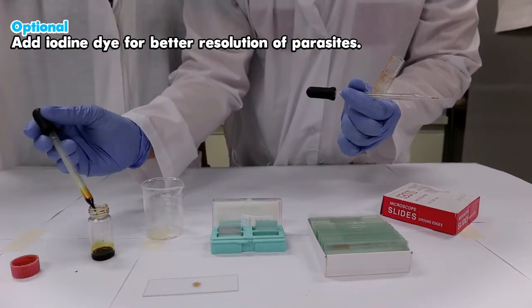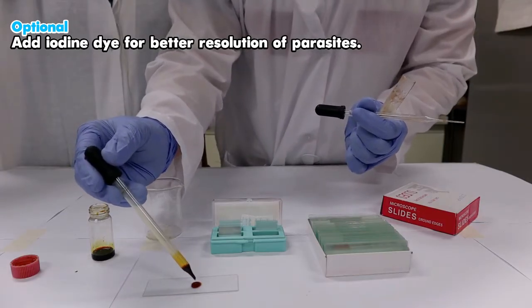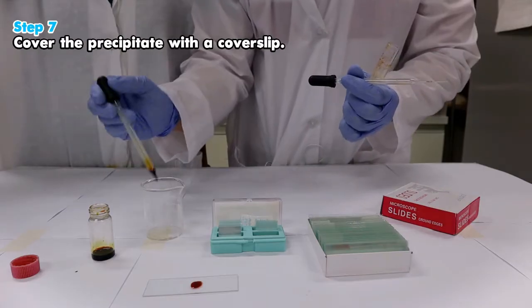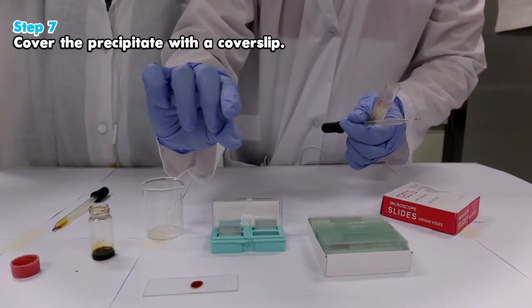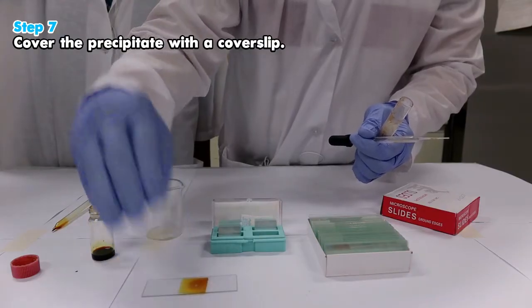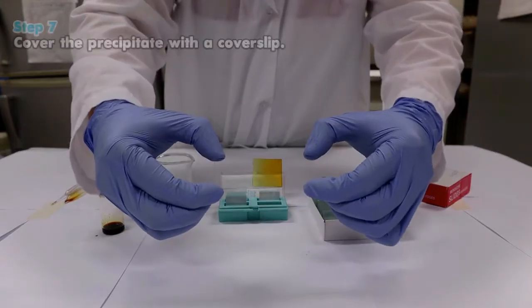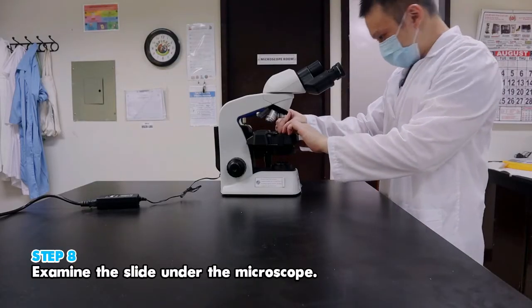Add iodine dye for better resolution of parasites. This is an optional stage. Cover the precipitate with a cover slip. Then view it under the microscope.